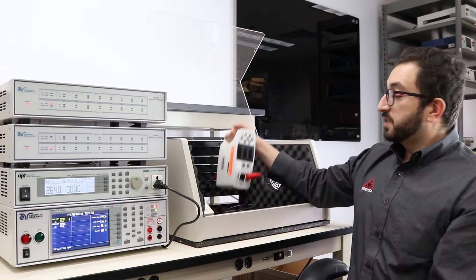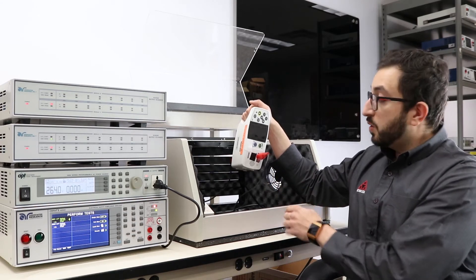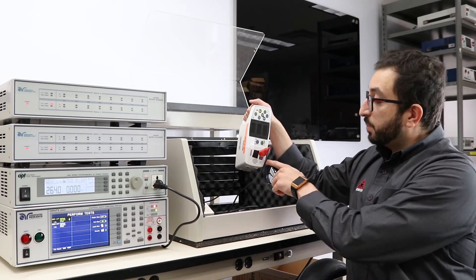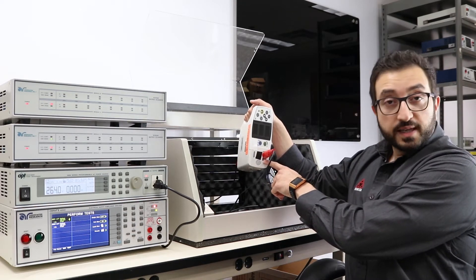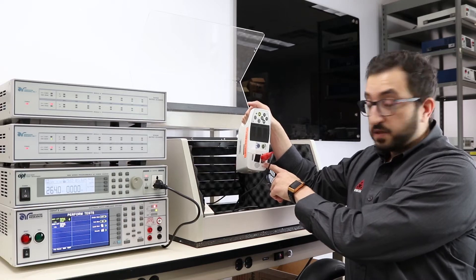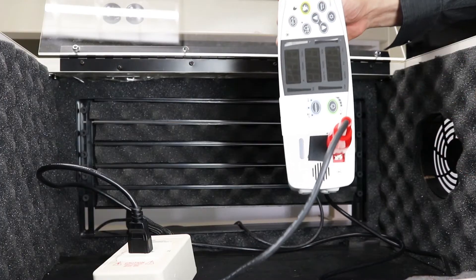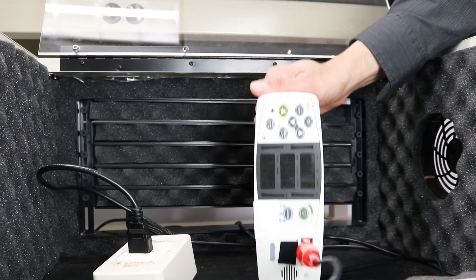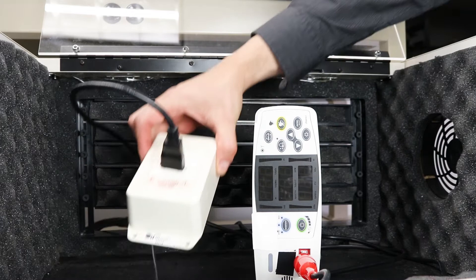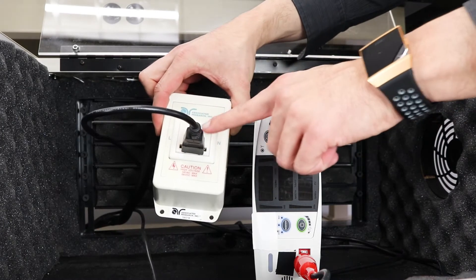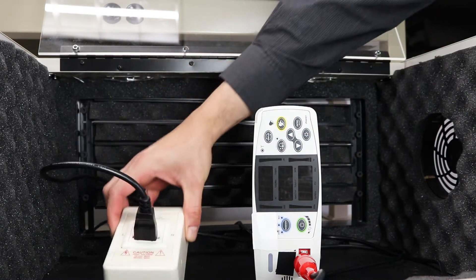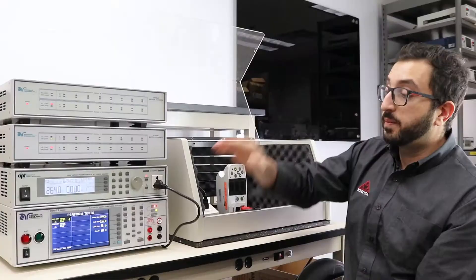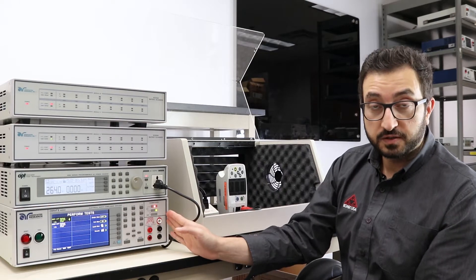Here's our medical device. As far as the connections go, I've connected the applied part that's under test to one side of the measuring device circuit, and I've also plugged in the line cord of our medical device into the adapter box coming out of our leakage current analyzer.